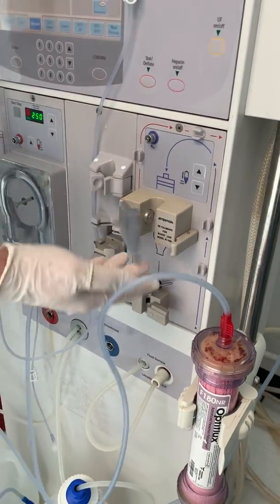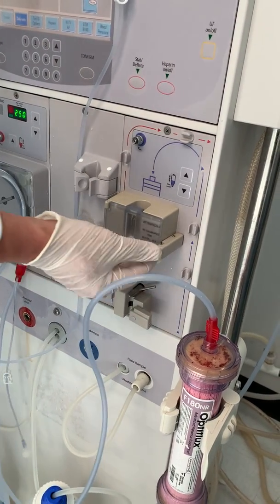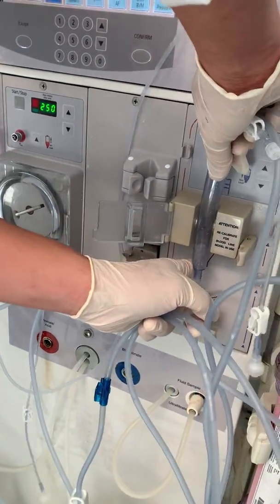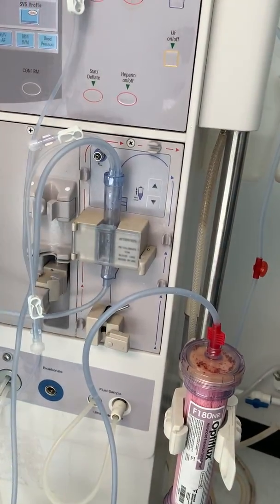Open that door — it's just a simple push and pull. Push, push, and pull back. Most of the time we twist and turn: twist, press and twist. Then push it, push it, go back in. And the same thing with the arterial side.